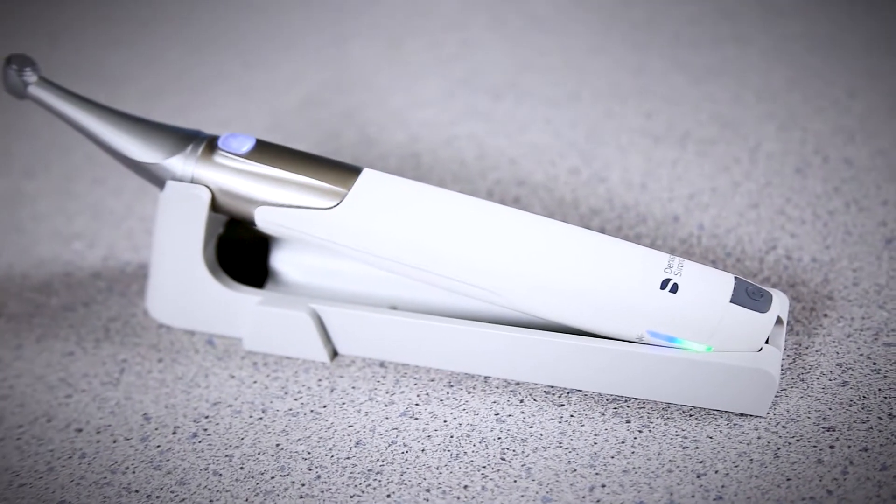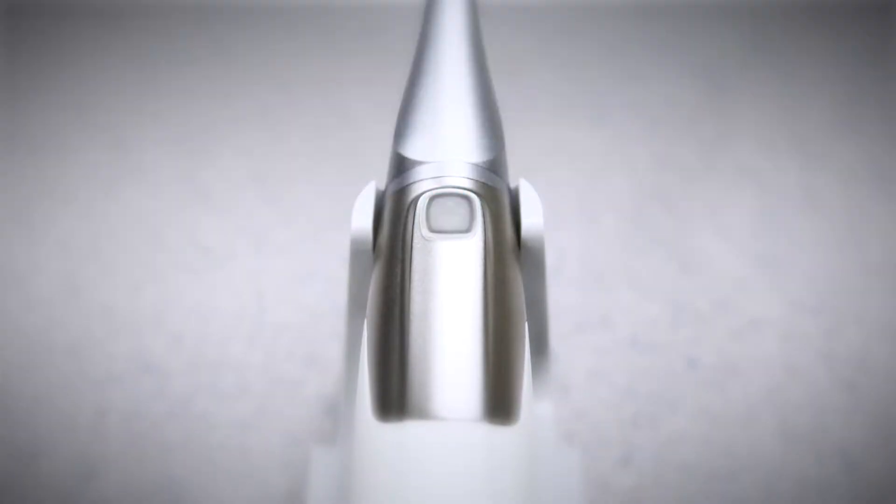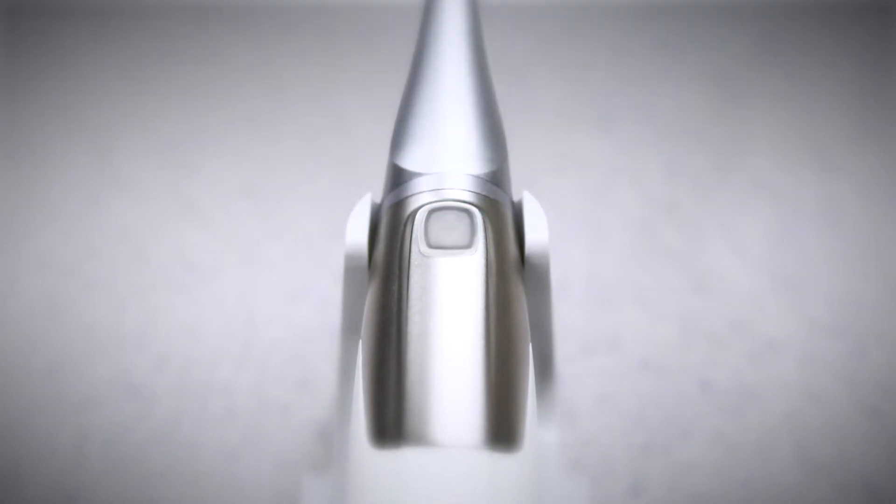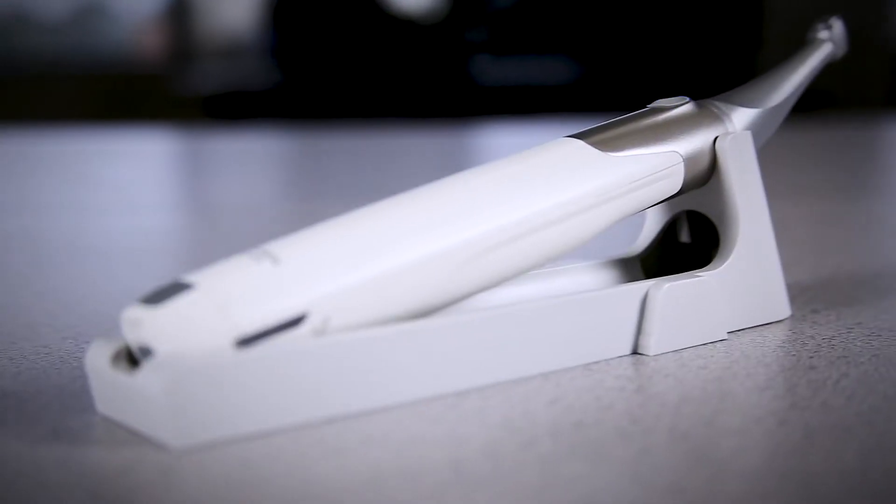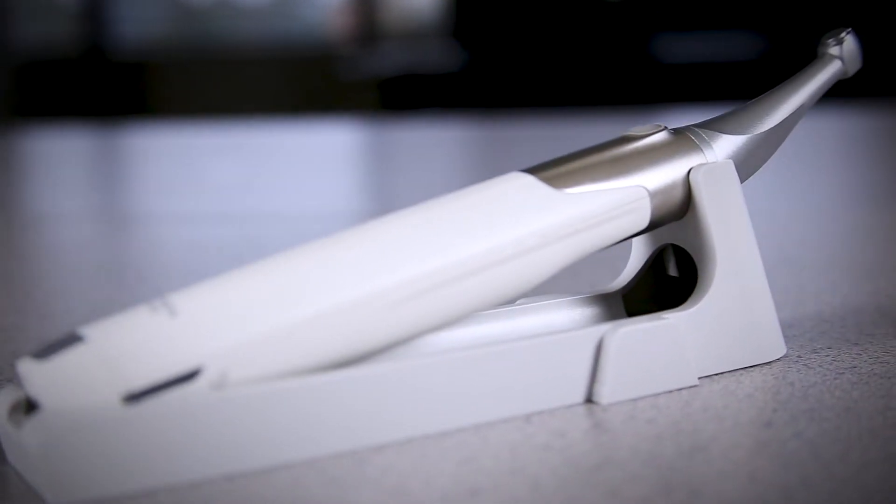There's no power off button on the handpiece. It goes into a standby mode 1 after inactivity of 35 seconds and then a standby mode 2 after 30 minutes of inactivity.